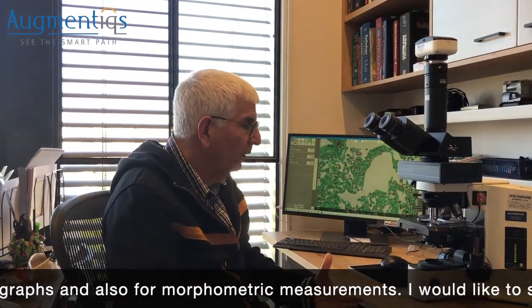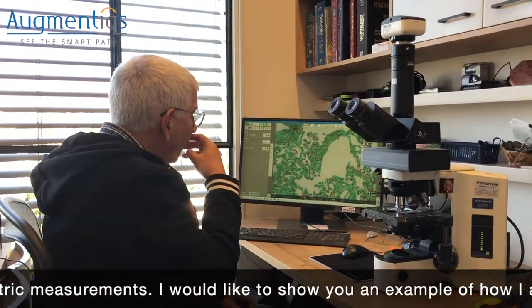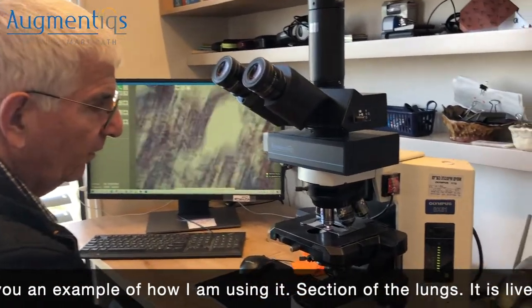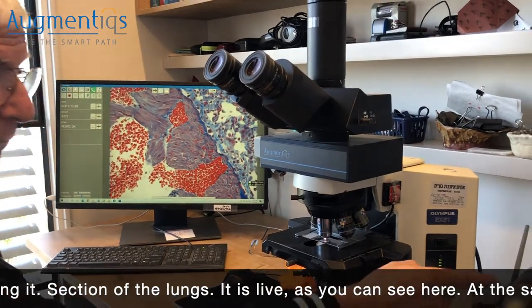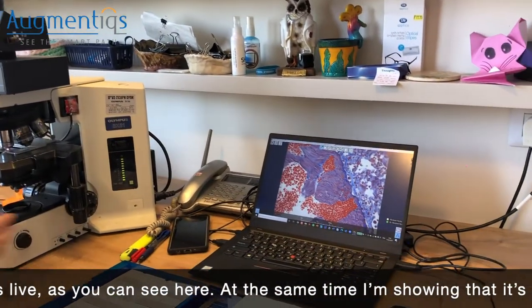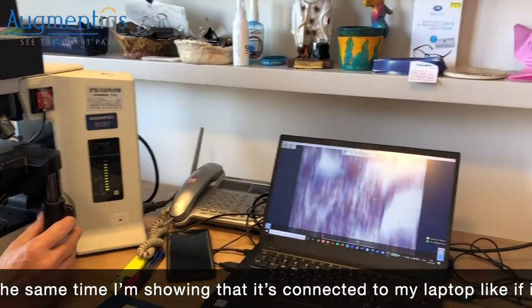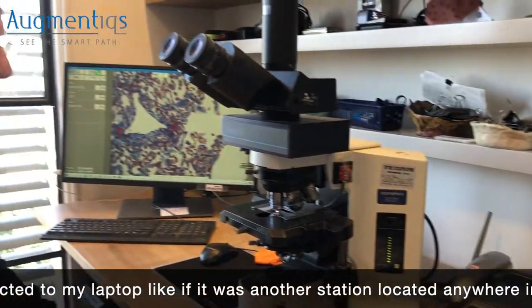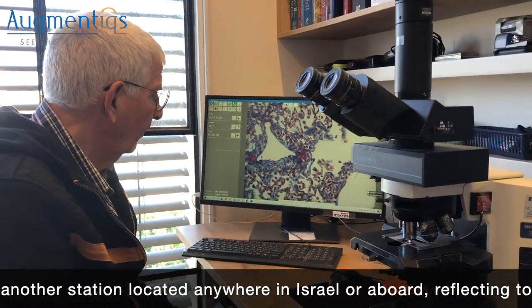I'd like to show you an example of how I use it. Here is a live section of the lungs, and at the same time it is connected to my laptop — like another station located anywhere in Israel or abroad — reflecting another client.